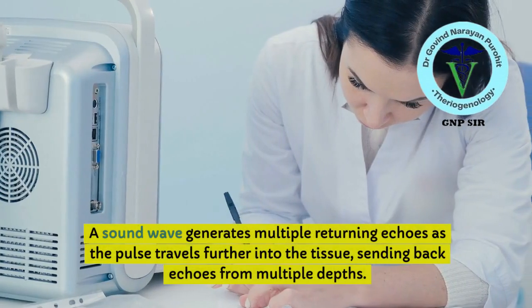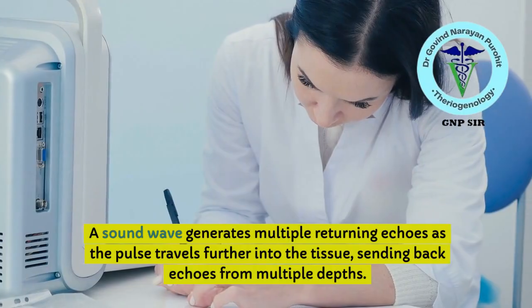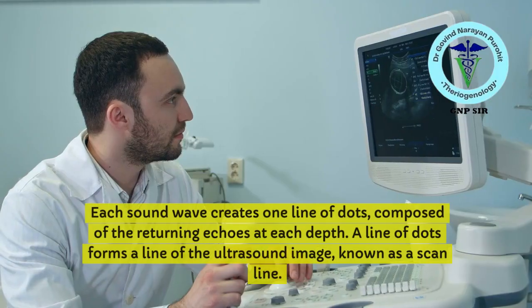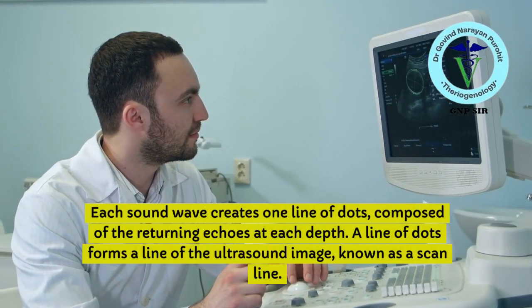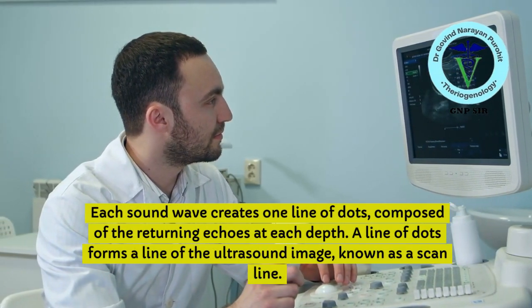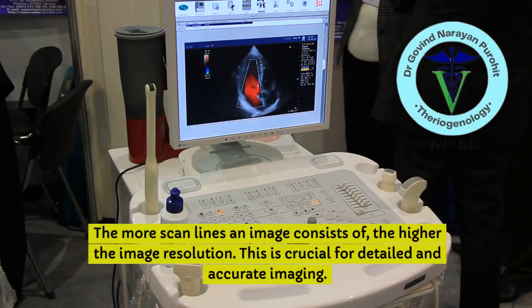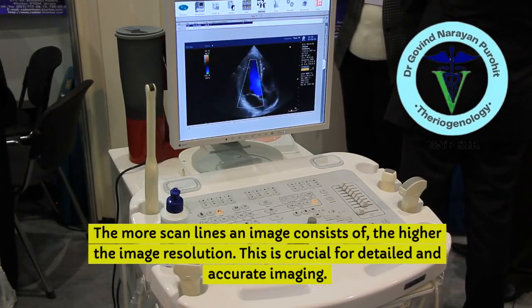A sound wave generates multiple returning echoes as the pulse travels further into the tissue, sending back echoes from multiple depths. Each sound wave creates one line of dots, composed of the returning echoes at each depth. A line of dots forms a line of the ultrasound image, known as the scan line. The more scan lines an image consists of, the higher the image resolution. This is crucial for detailed and accurate imaging.